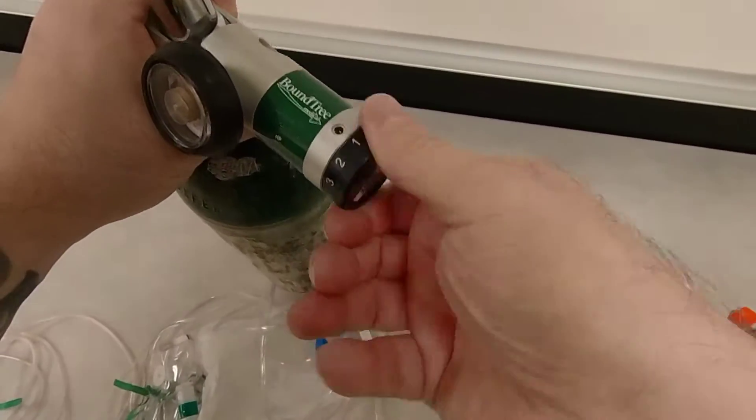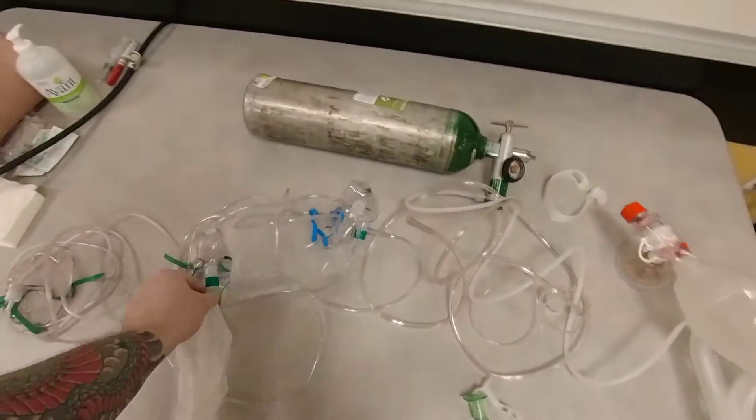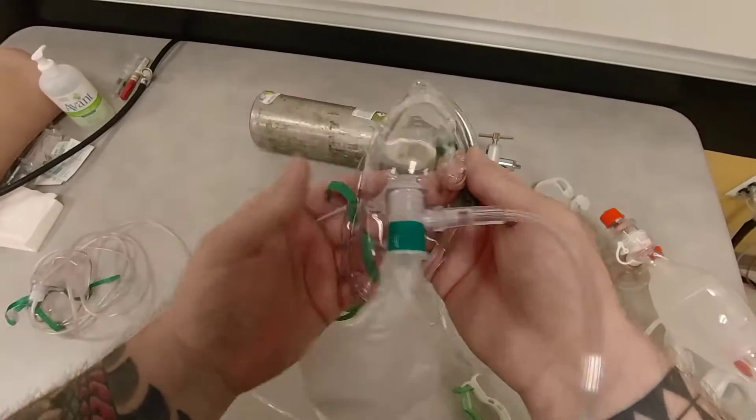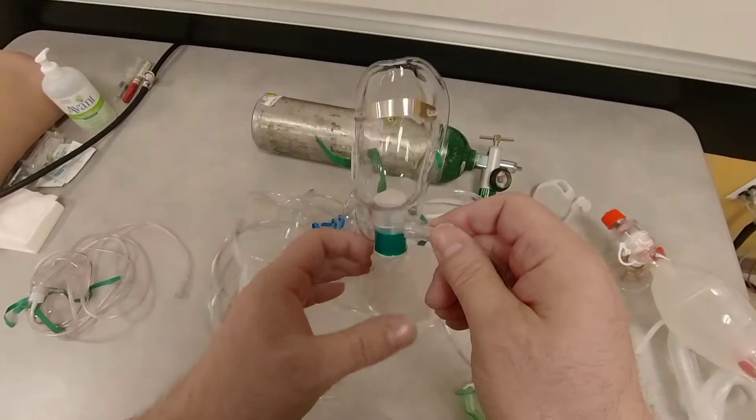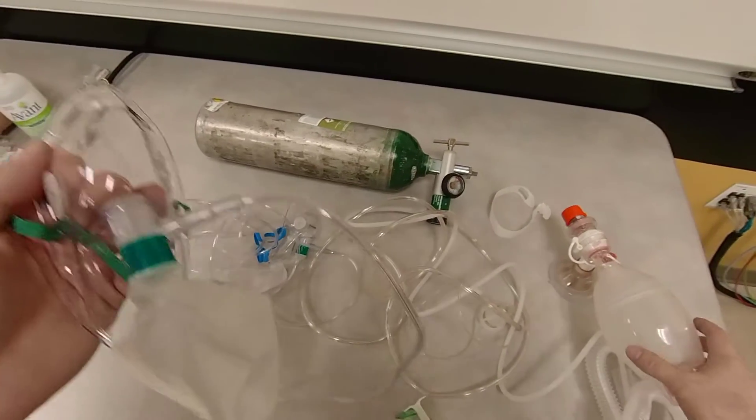But in the hospital, they were able to exceed to go to 40. And when they went to 40, they were able to pre-oxygenate a patient with a mask like this that delivered 100% FiO2. So it was just as good as the BVM connected to 15 liters per minute.